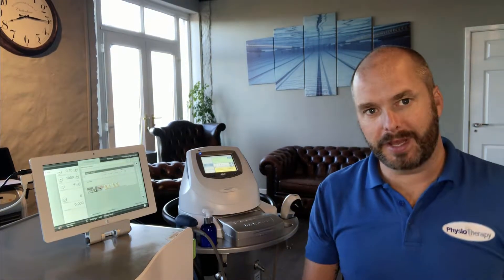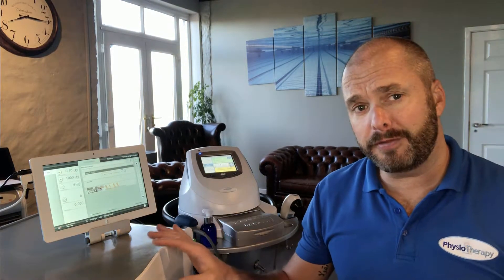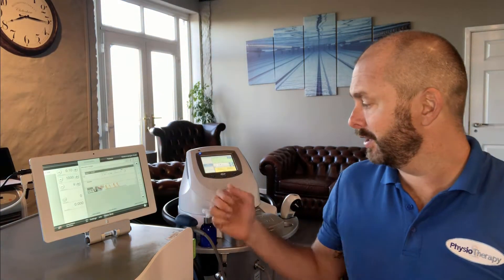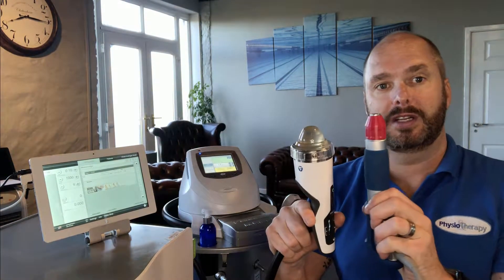Hello and welcome to another episode of the show on paulhober.com on YouTube. I'm going to give you a basic introduction to the different types of shockwave, because we've had some really good discussions on this section and I wanted to talk about the differences between radial and focused.